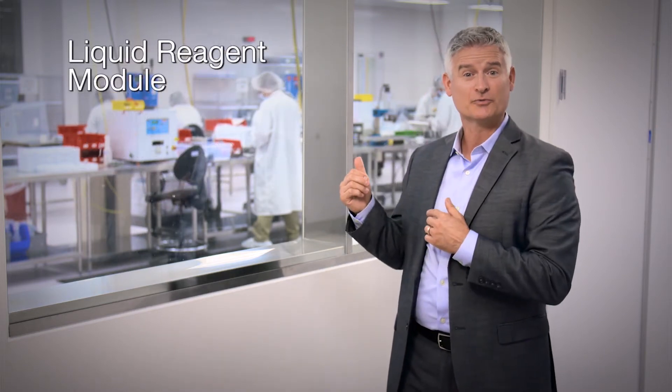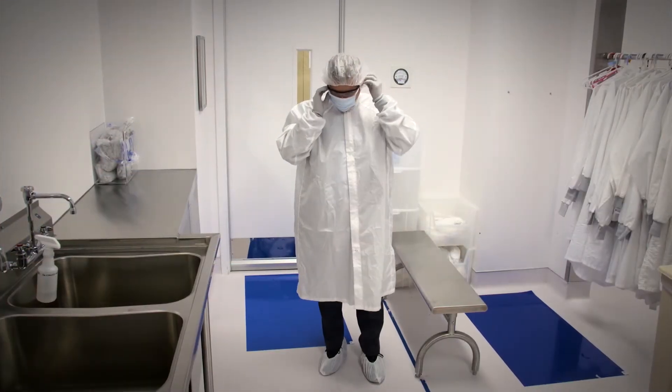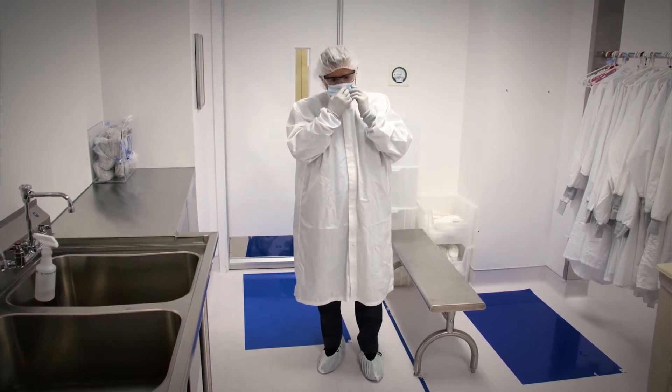Behind me is the room where we assemble the LRMs. Let's gown up and go inside the clean room to take a closer look.